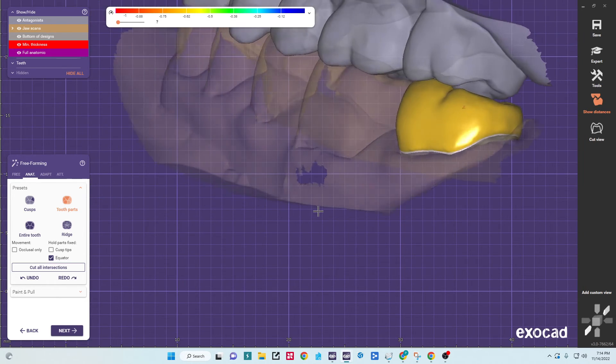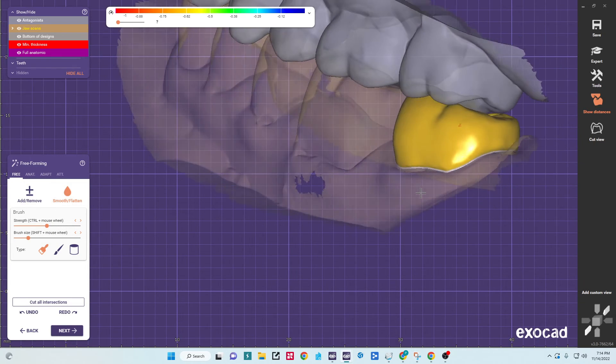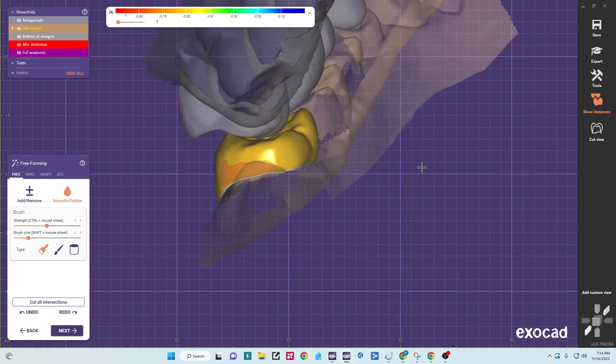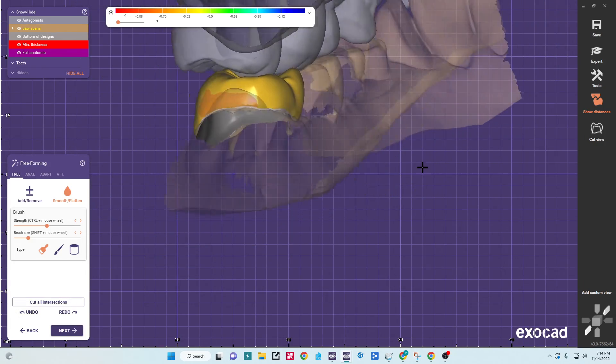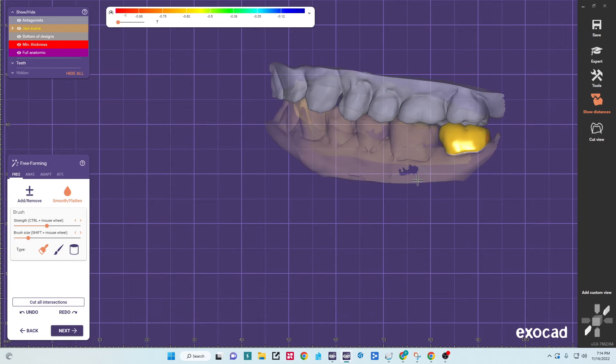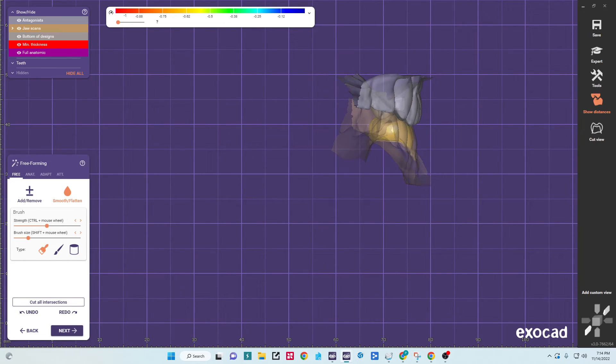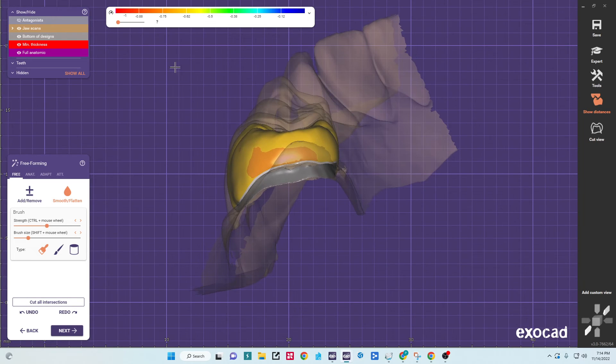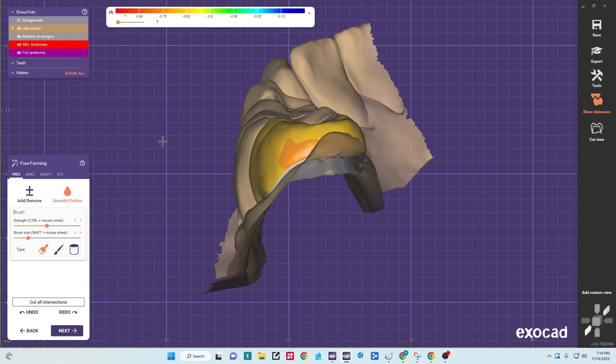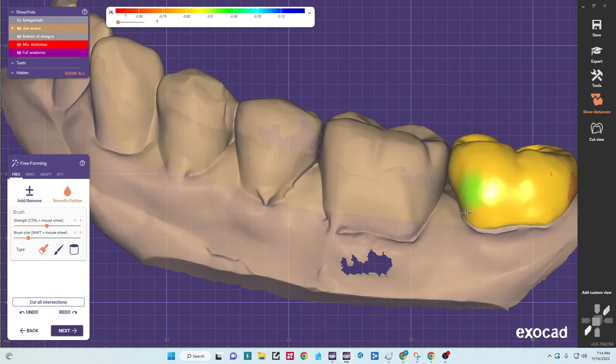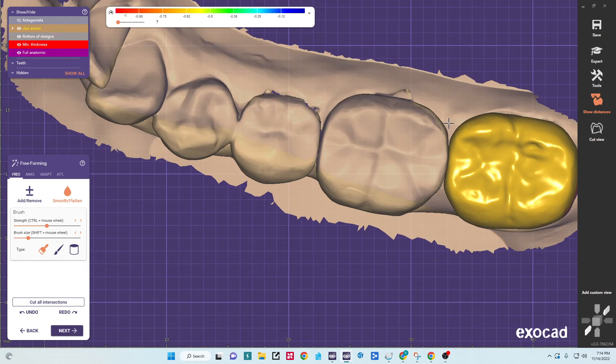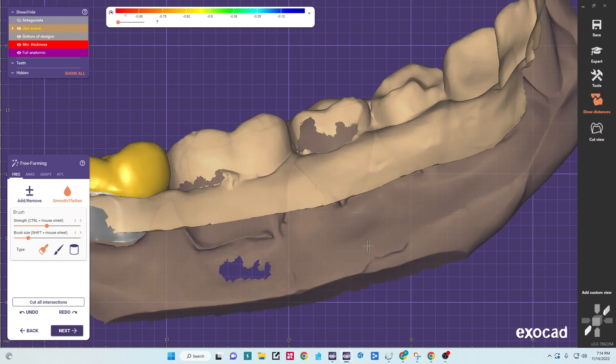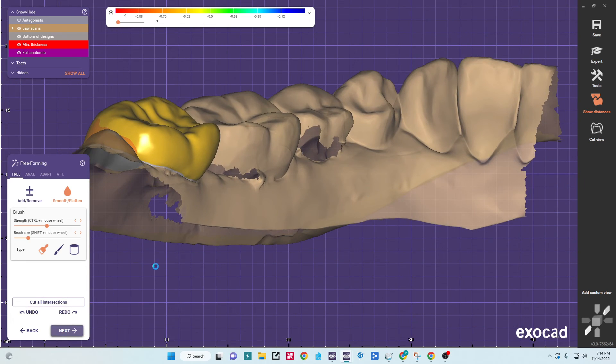So just got that done. And then again, just smooth flatten anything. That red is the minimum thickness, so the software will add that back. But we're basically done here now. And as a final check, look down the corridors, make sure our cusps line up with the neighbors, and that all our embrasures are symmetrical here, symmetrical here. So that all looks pretty good. Check the crown from every angle, and then we'll go next.